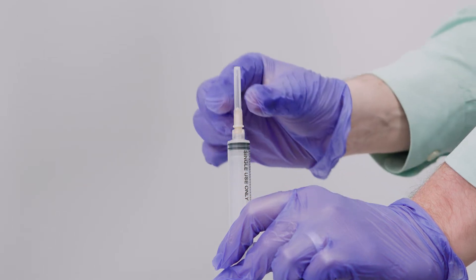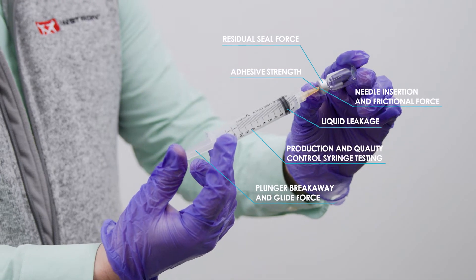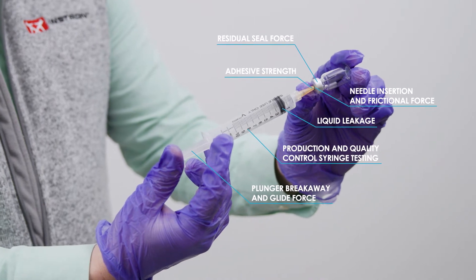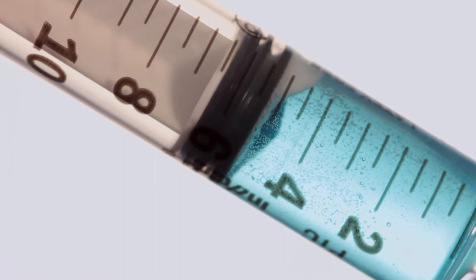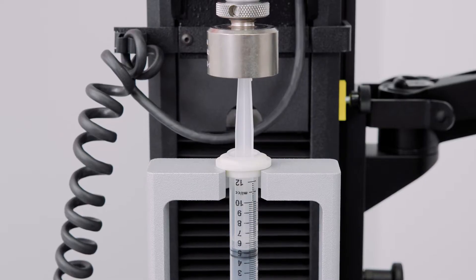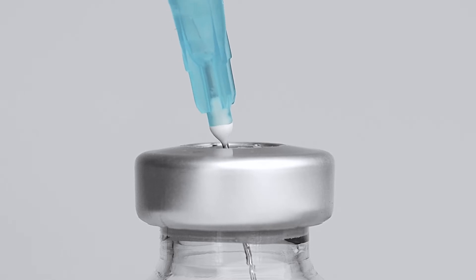No biomedical device is as ubiquitous as the common syringe. Despite its apparent simplicity, there are many design elements that must be taken into consideration to ensure that syringes perform optimally. As a result, extensive product testing is needed before a syringe can be released into the market.